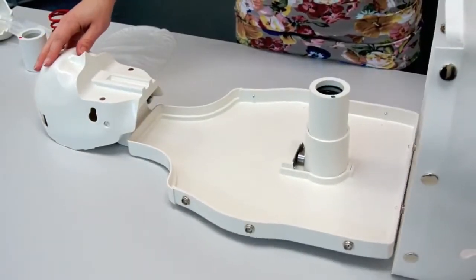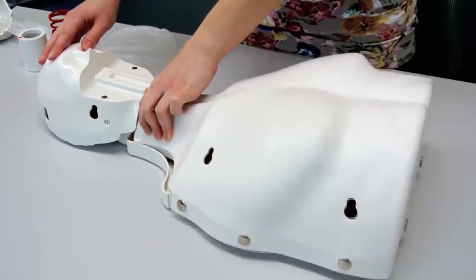Replace cover, face skin, and thorax skin in reverse order.